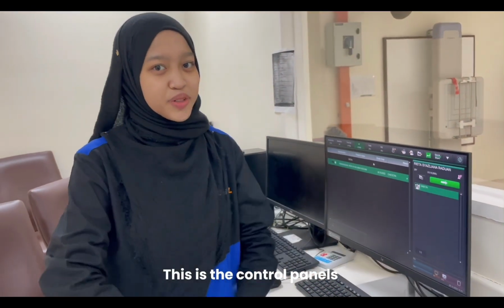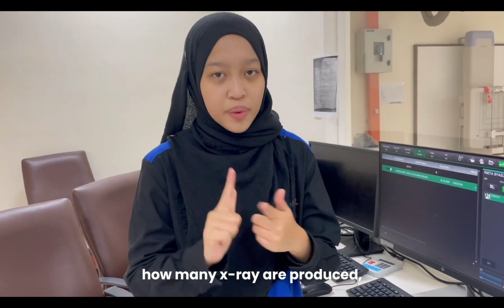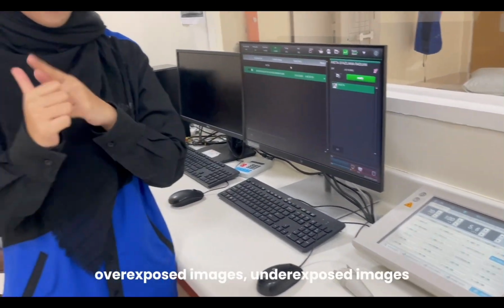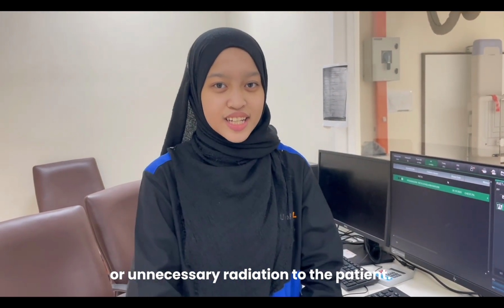This is the control panel. It determines how strong the X-ray beam is, how many X-rays are produced, and how long the exposure lasts. Incorrect settings here can lead to an overexposed image, an underexposed image, or unnecessary radiation to the patient.